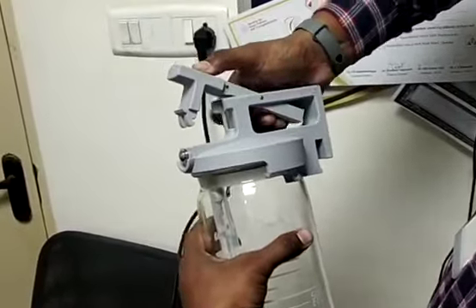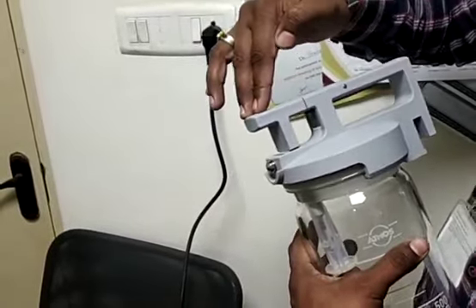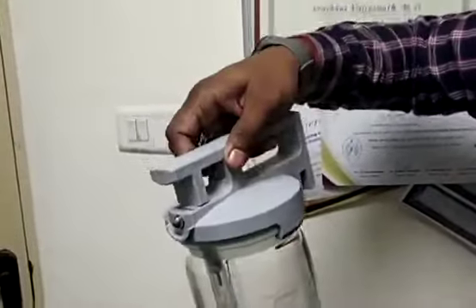Just lock it. Then press this button and fill it until it gets locked. Now you can see it will get locked. Even if you hold this lid, the jar will be secure.